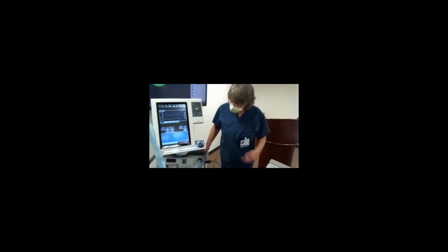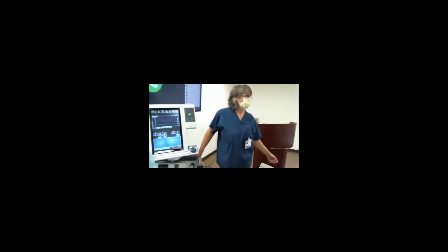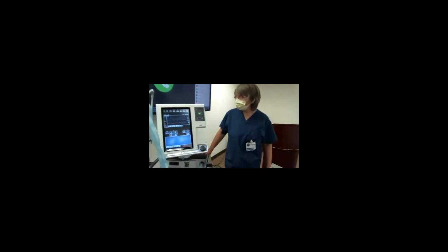This ventilator is also capable of ventilating 2 people at the same time. The people would have to be similar in size. They would have to be paralyzed. There's a lot of factors involved, but if it actually came down to worst, it's life or death. We're able to ventilate 2 people at the same time. And I found the circuit over here to demonstrate how that would be, if you guys want to look at it later. I can show you.